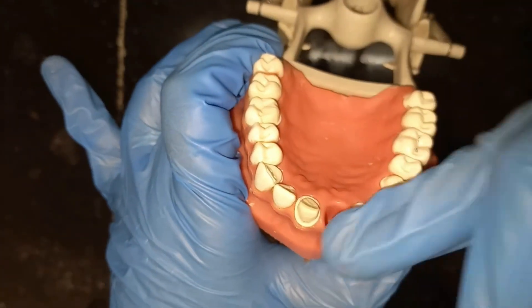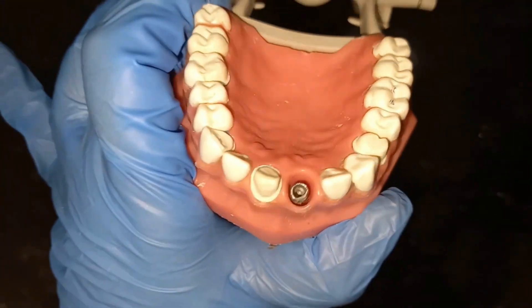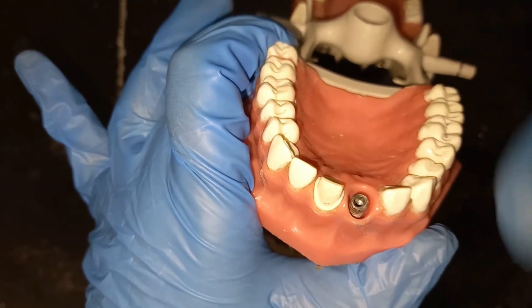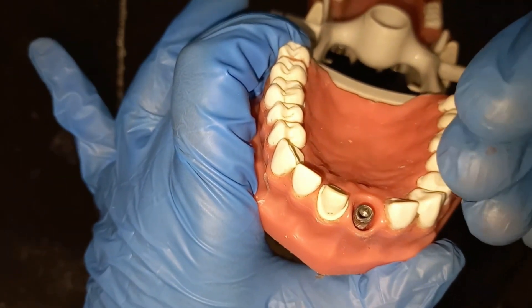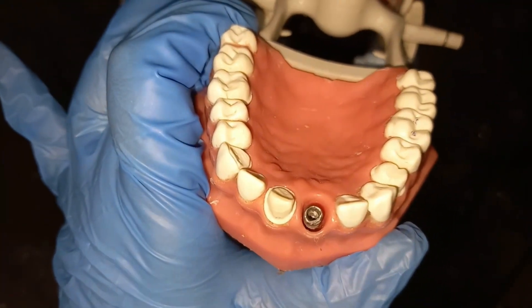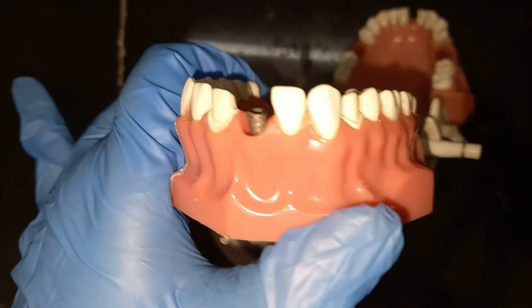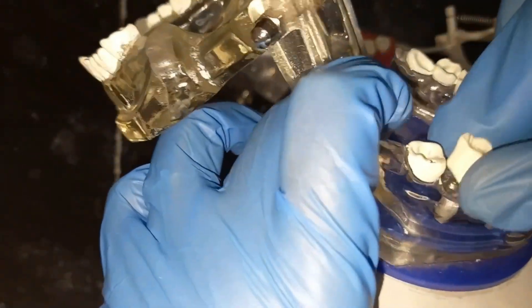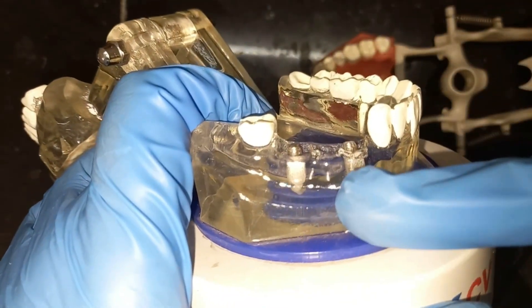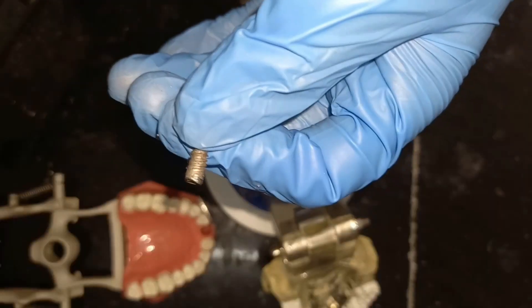In layman's terms, it acts as a root. As you can see in the figure, after extraction a socket is left, and we place the implant in the socket — it will somewhat look like the root of the tooth. After osseointegration, we'll give a prosthesis over the implant. In the next image you can see that two implants are placed and a bridge is given over them — that is how the prosthetic part is done.